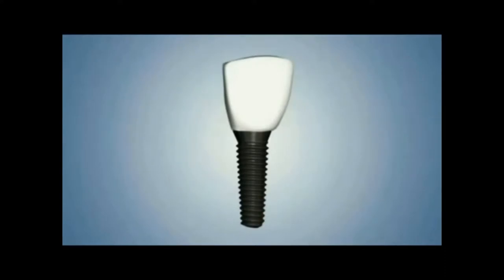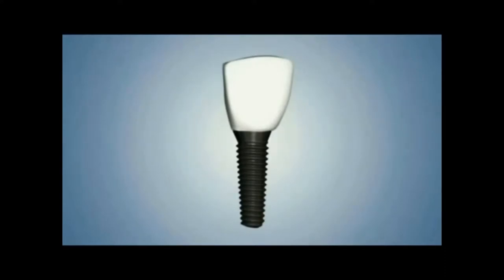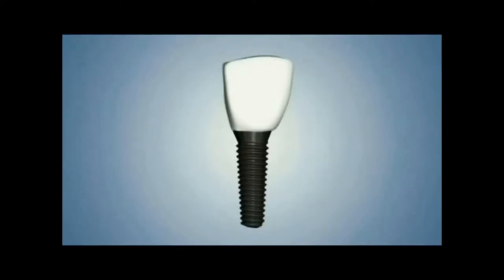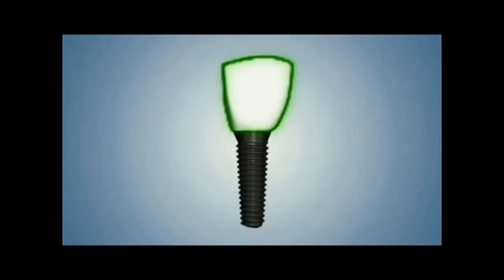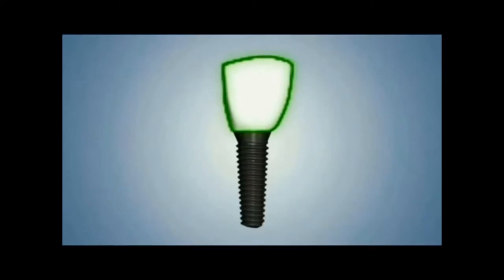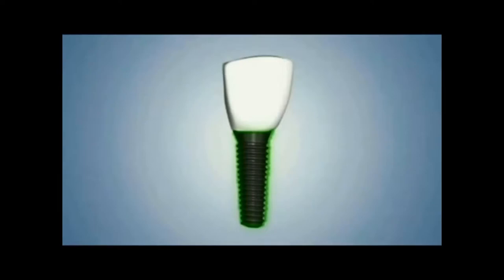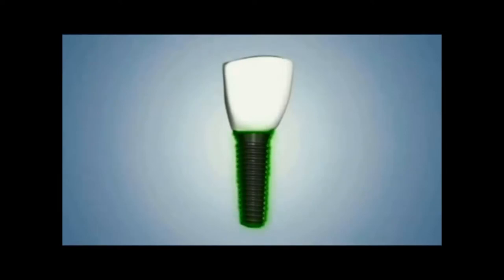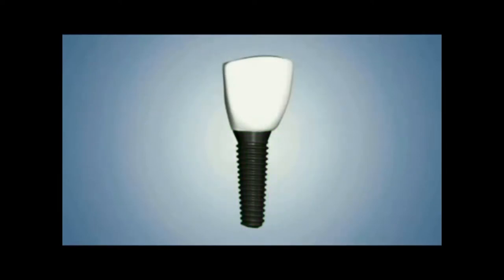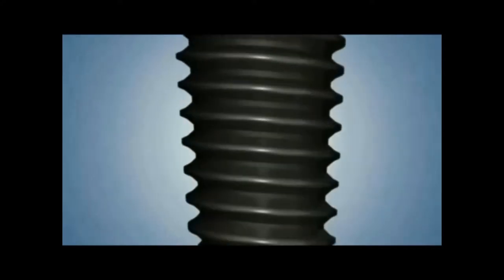A dental implant treatment may involve several pieces; however, it may also be described as having two main parts. One part is a restoration that is custom fabricated to match the shape of a natural tooth crown. The second part is the implant that replaces the function of a natural tooth root.